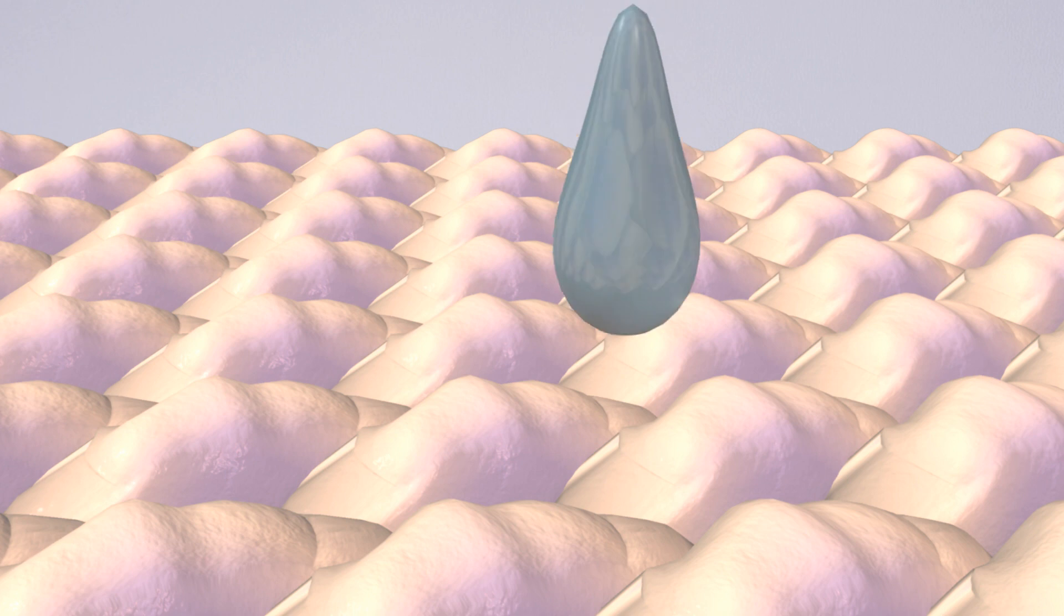In addition, presence of glycerol helps moisturize skin. Furthermore, in vitro studies show bacteriostatic and fungistatic effect up to 7 days.